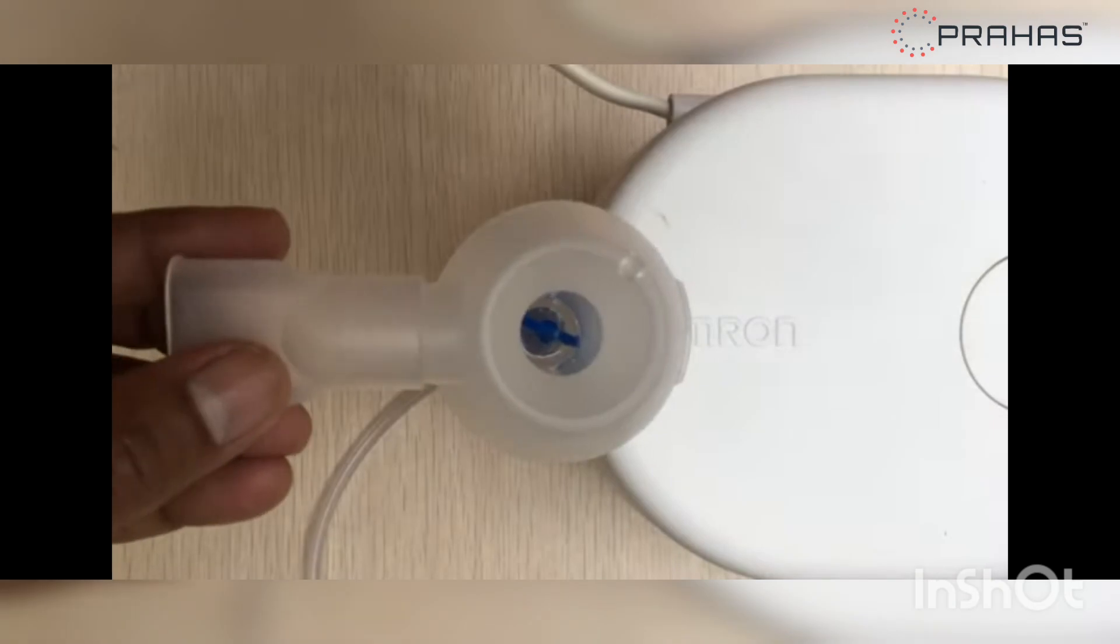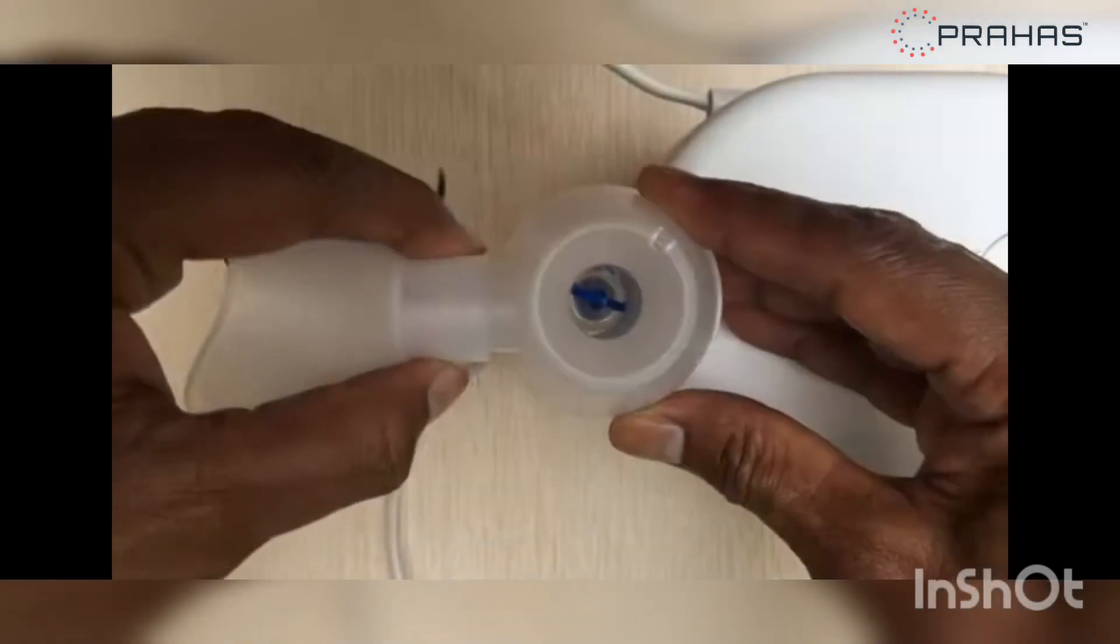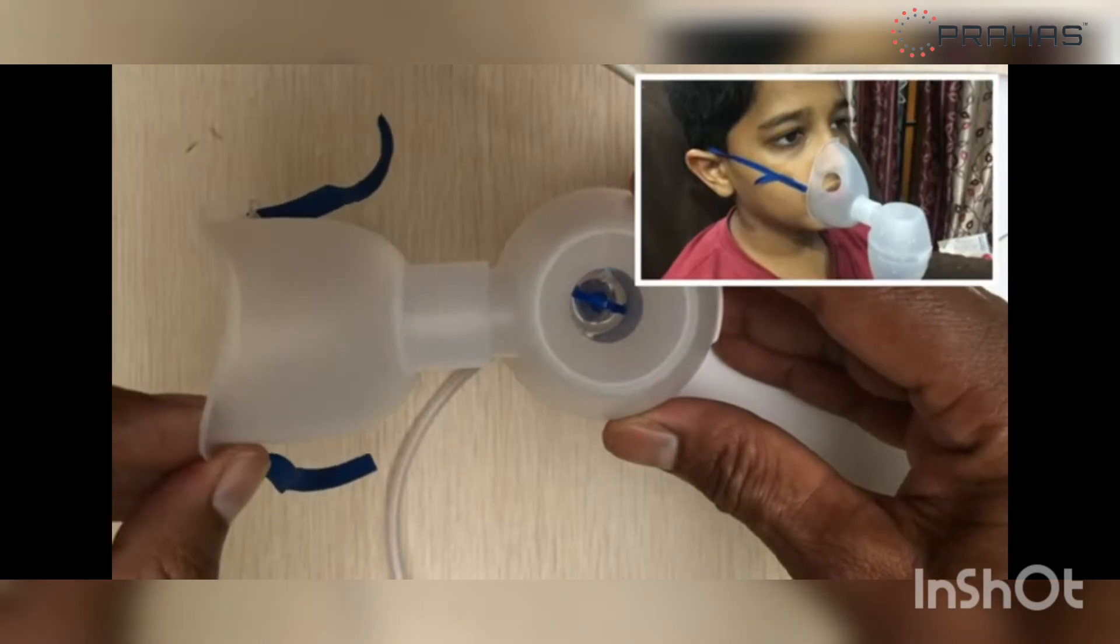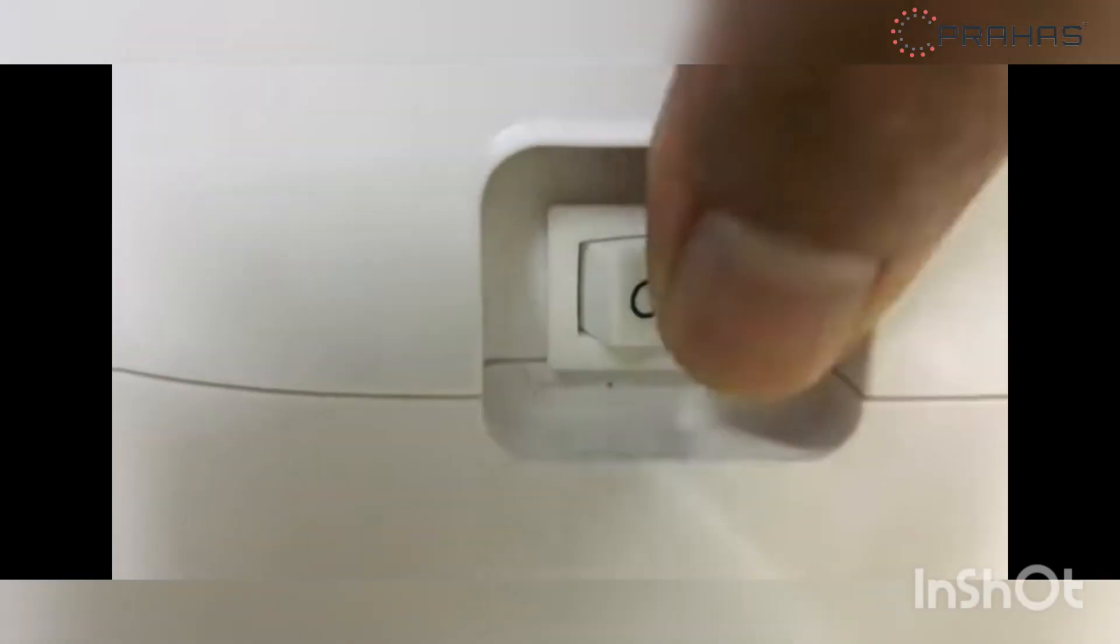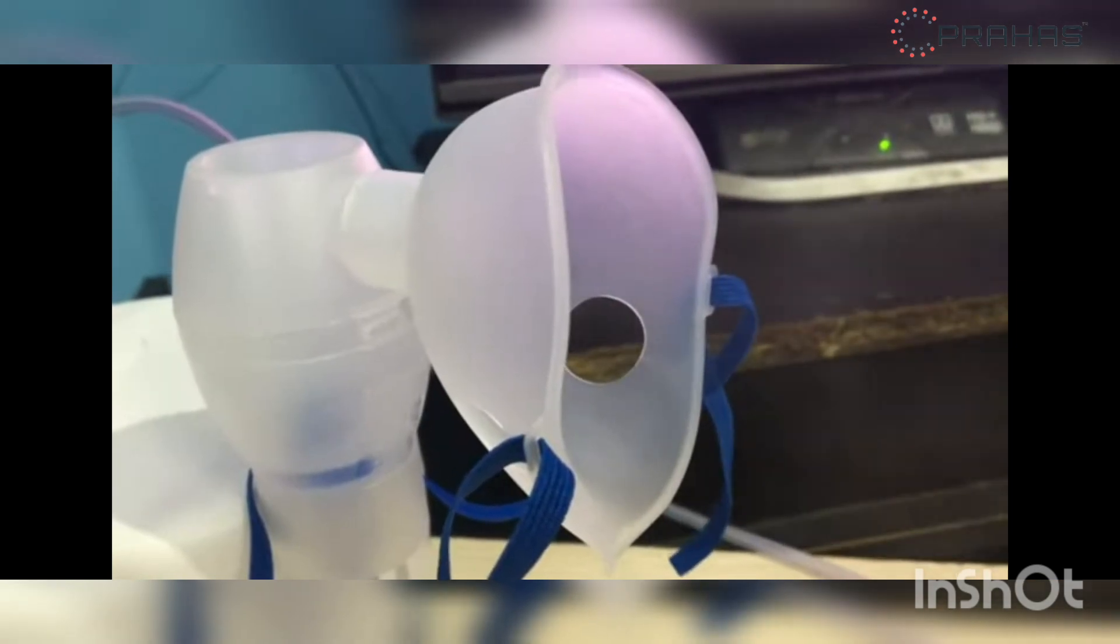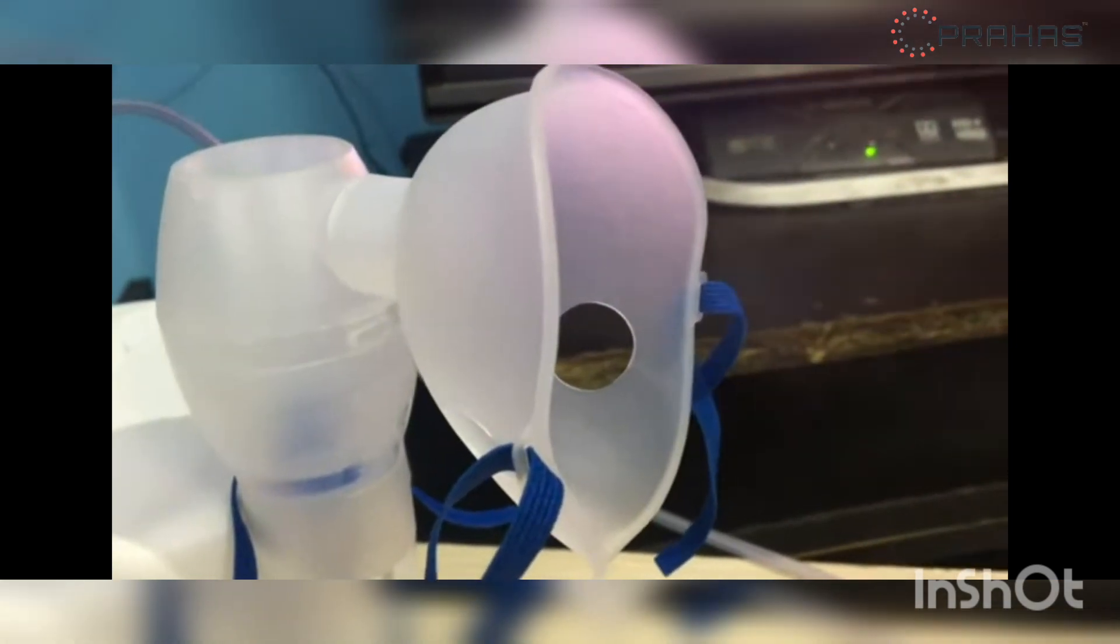Attach mouthpiece if the inhalation is from mouth or attach mask if the inhalation is from nose. Touch on the compressor. You can see nebulization begins and aerosol is generated.